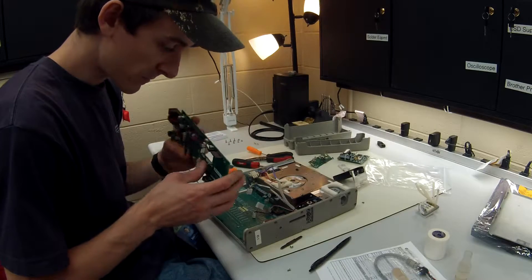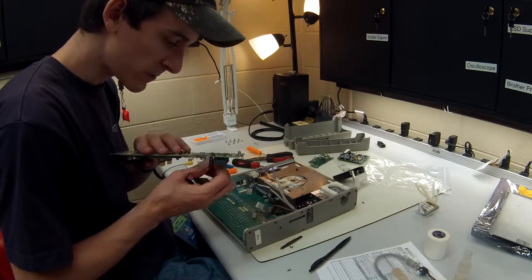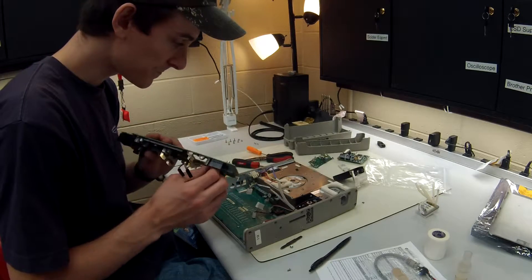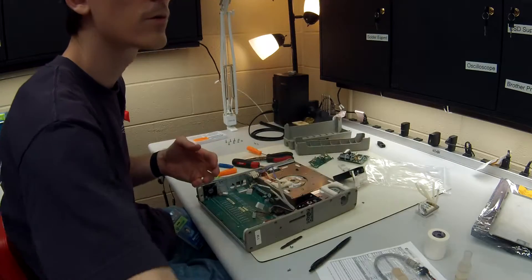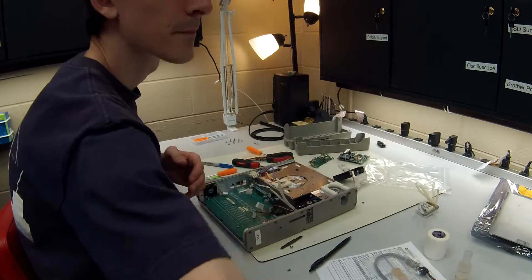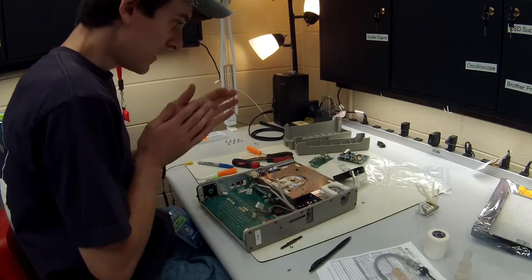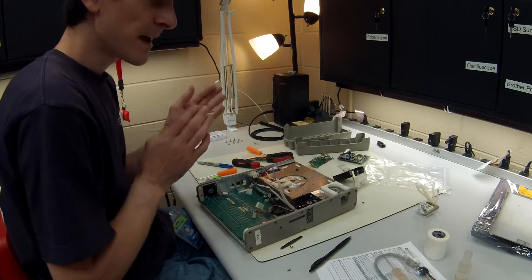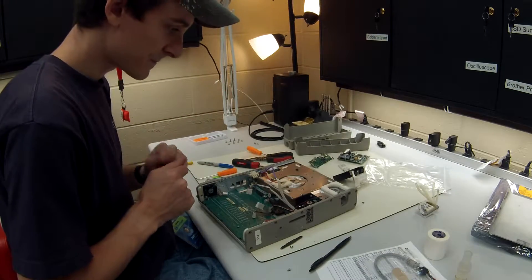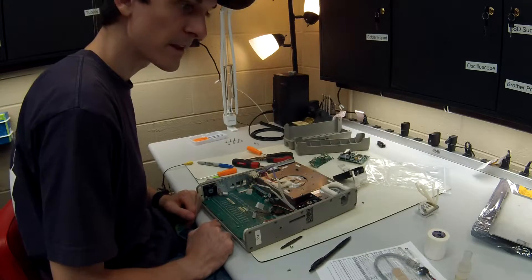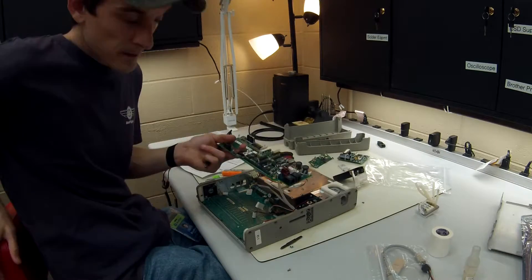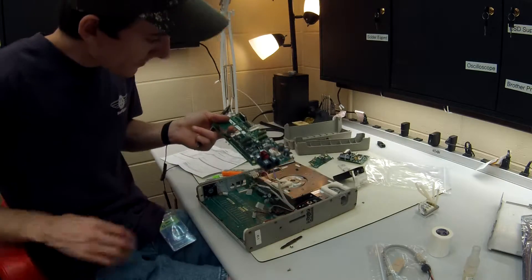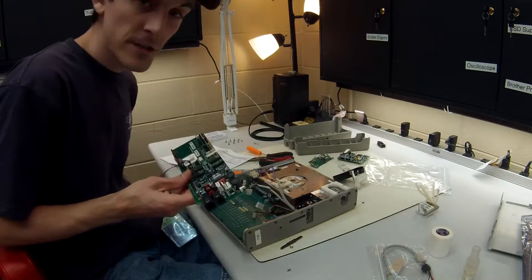If you don't want to use a brand new one, you could use a good old one. So there's that. Now it's time to put everything back in. Okay, so the one thing Carefusion likes to do, I have never seen a company do it before.